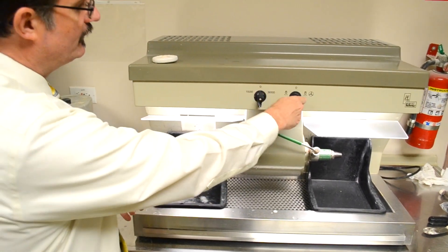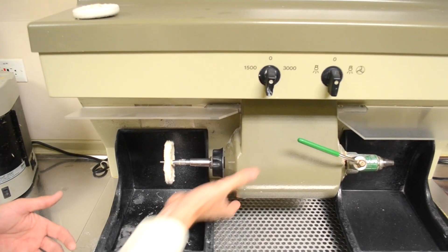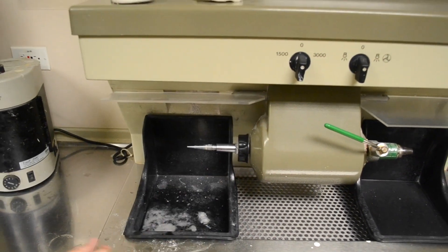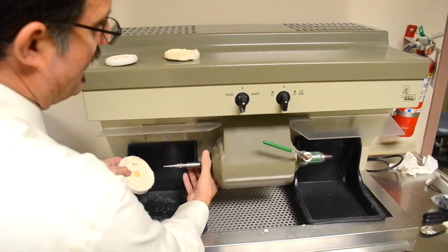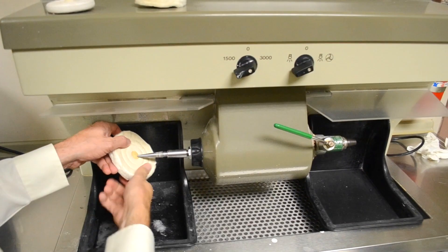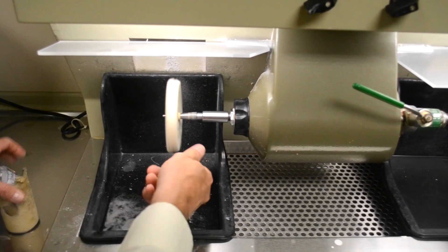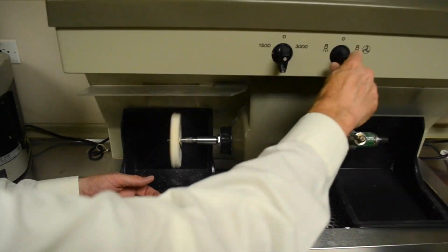If you want to put another wheel on there, stop the machine. Your denture has been pumiced and now you want to add your Acryluster. Take your Acryluster wheel, back it off, then put it on with a little pinch. Apply your Acryluster, polish your denture, and then when you're ready for a high shine, turn it off.